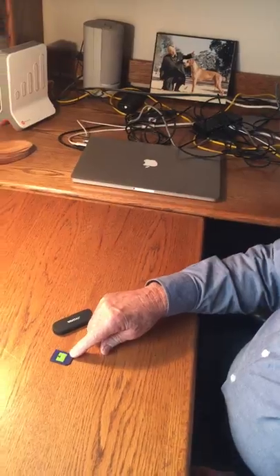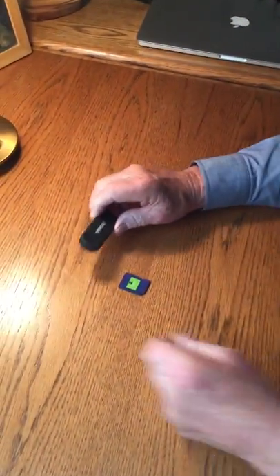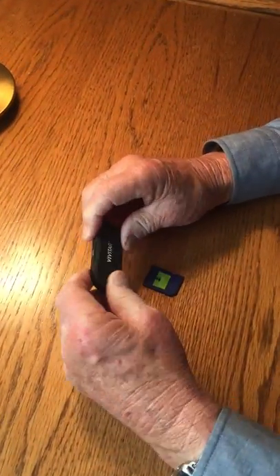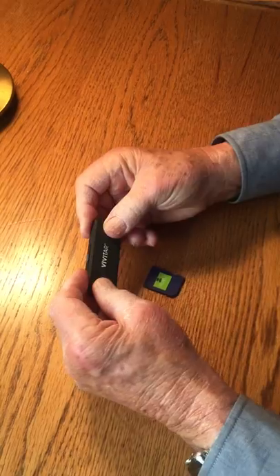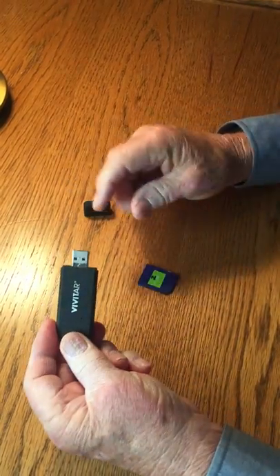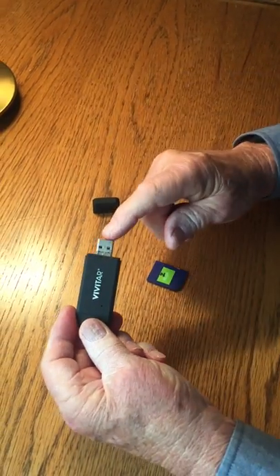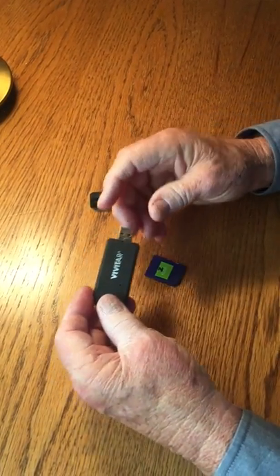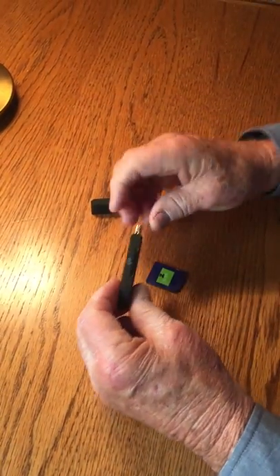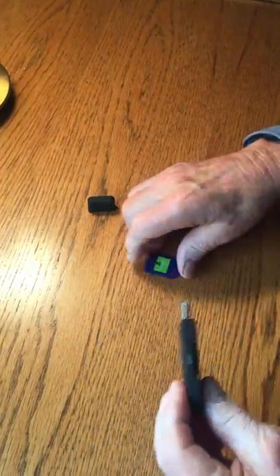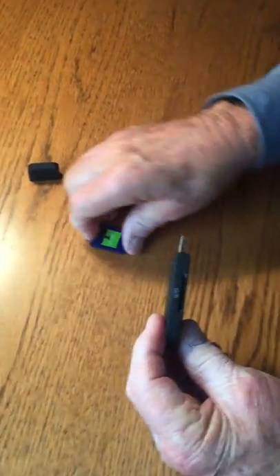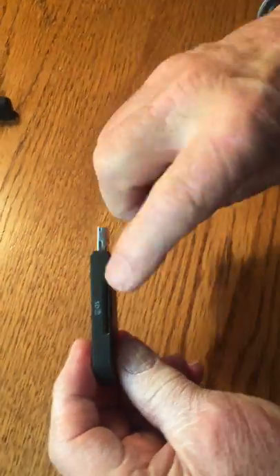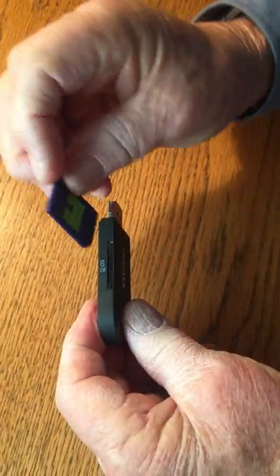So this is a little data card that we took out of the Holter monitor, and we used this data card reader which has got a USB plug, and it shows you on the side how the orientation to insert the card.